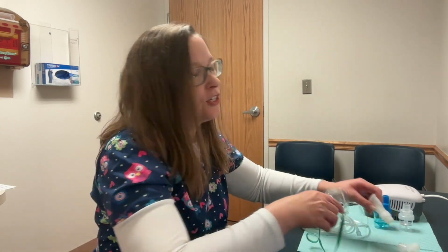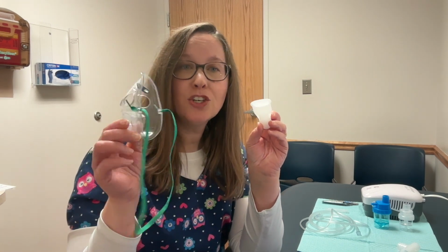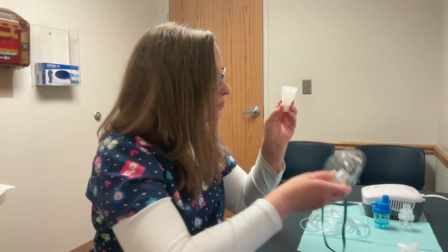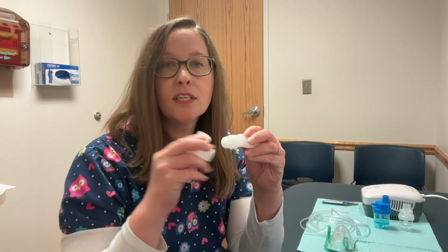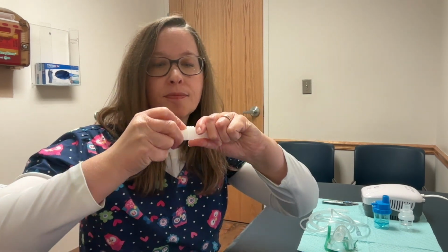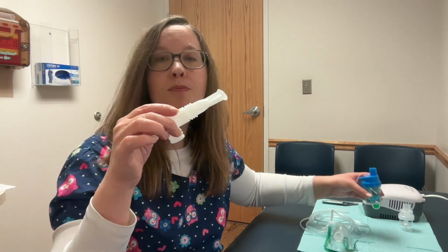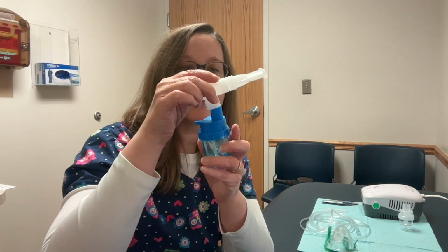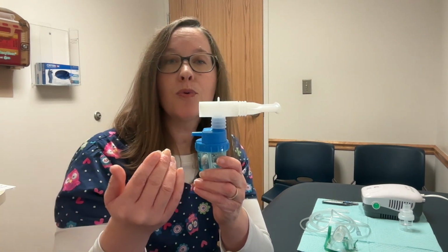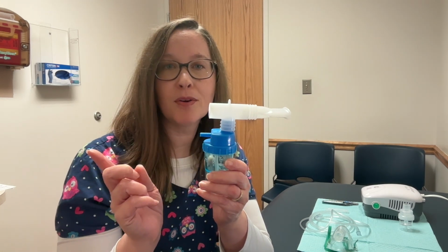There are two ways to inhale this medication. For the older child, we use this mouthpiece. For the younger child, we use a face mask. If you use the mouthpiece for the older child, you will connect it to a T-shaped piece. You connect it to one end, like this. You then connect your mouthpiece to your medication cup, like this. It works better for most people to hold the mouthpiece this way and the tubing to come out this direction.